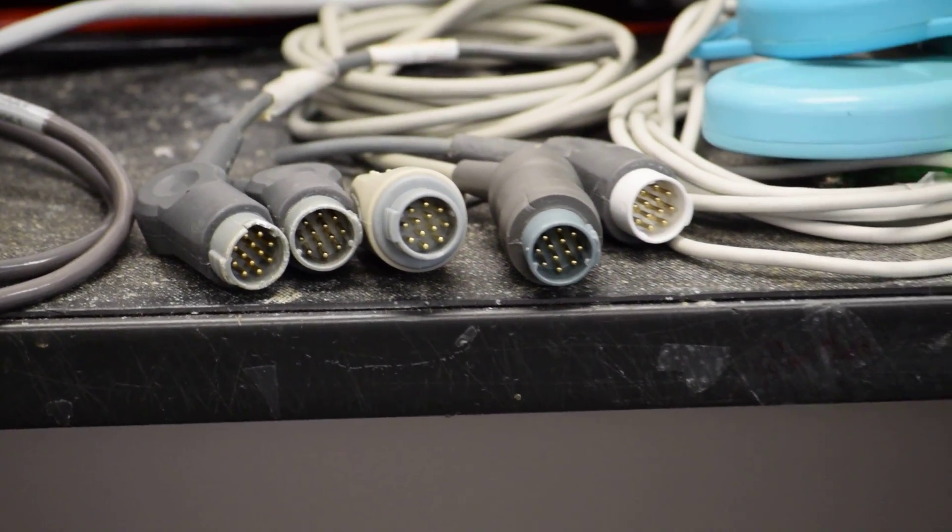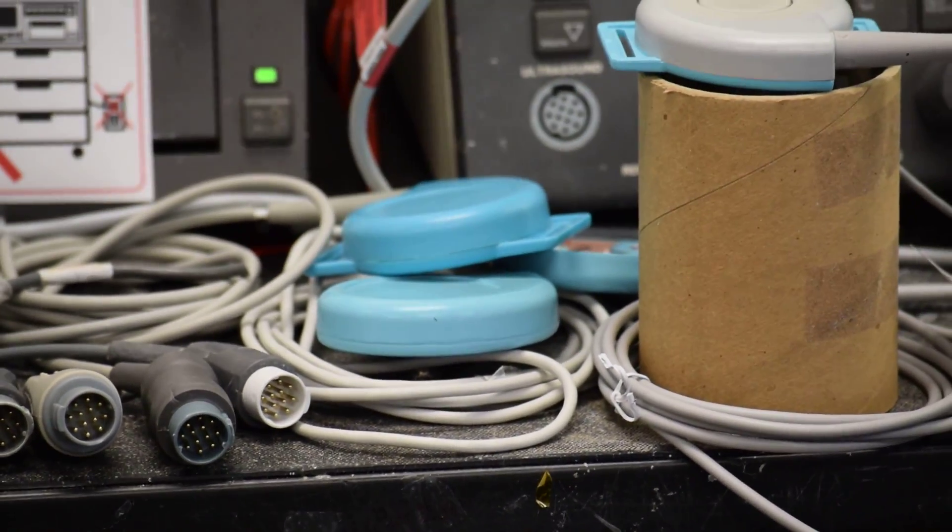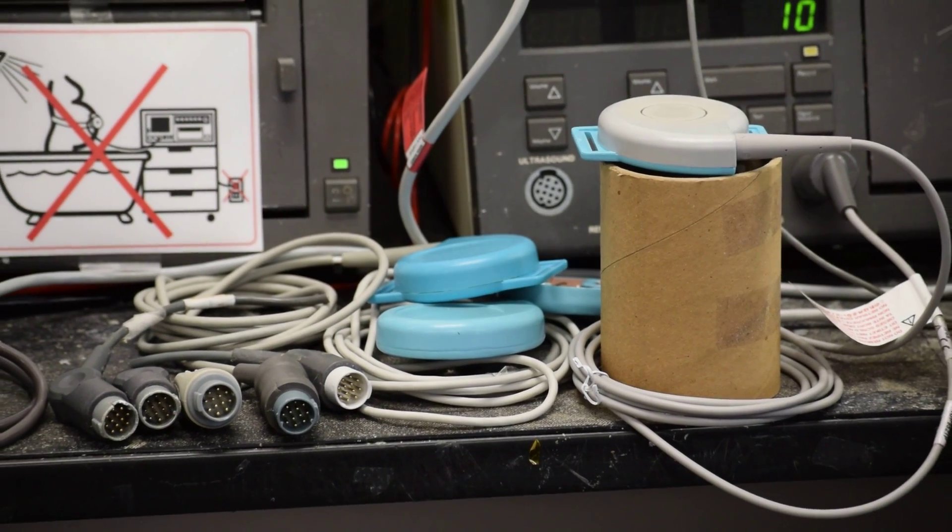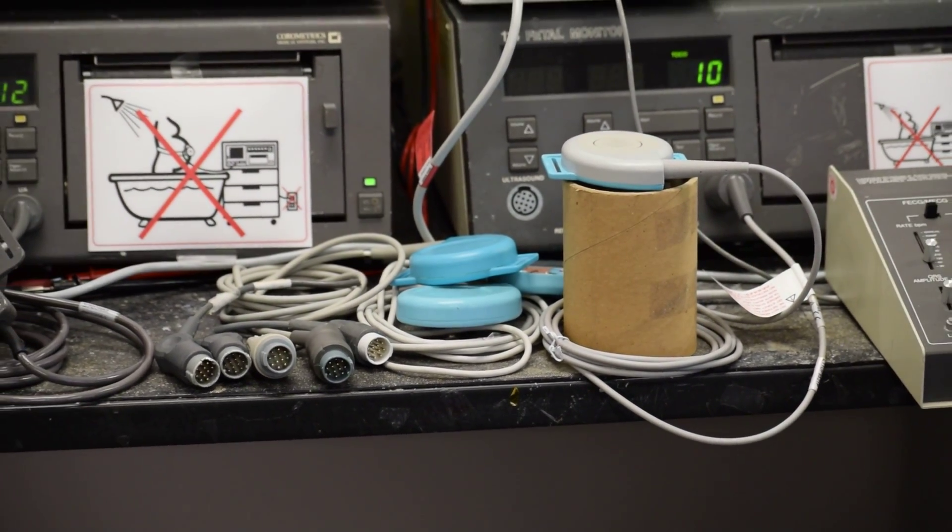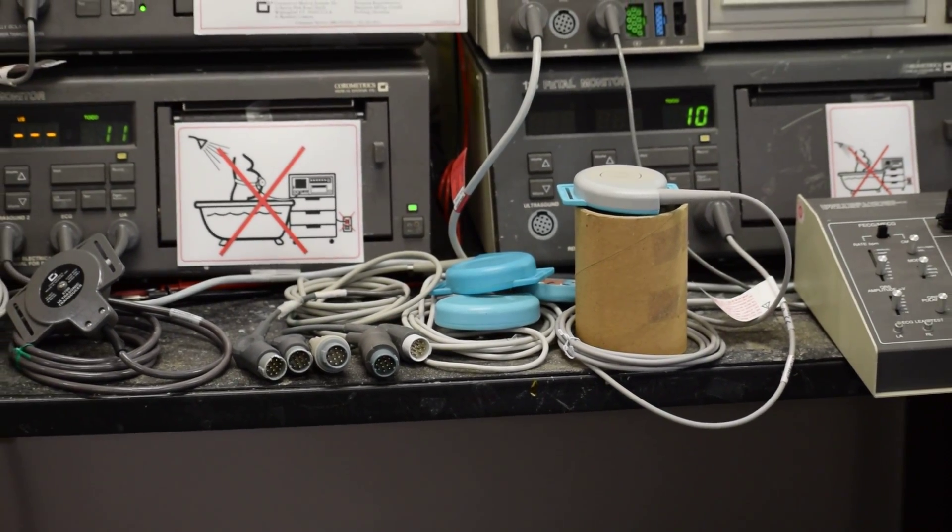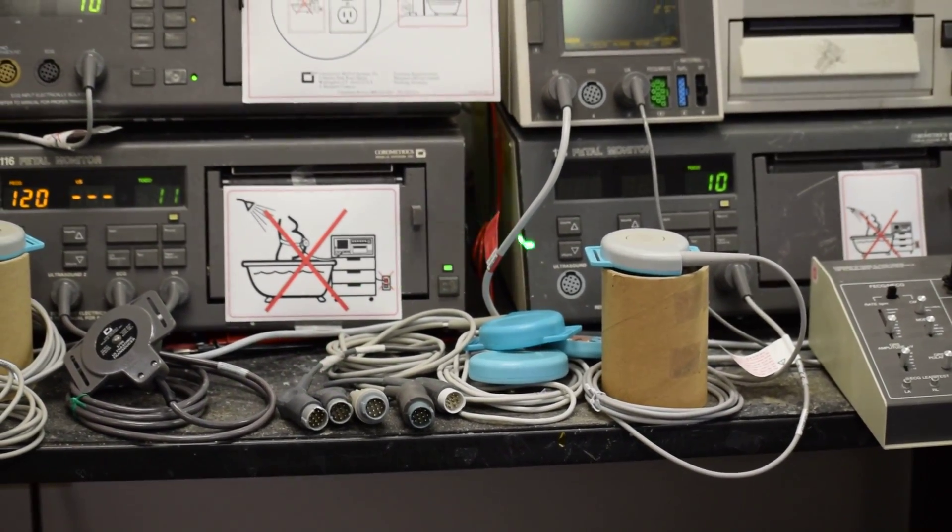Using them consistently with the fetal monitor plug-in and plug-out cycles creates a problem on the fetal socket. The monitor starts picking up spurious high fetal heart rates in the range of 250, even with brand new transducers from Corometrics.